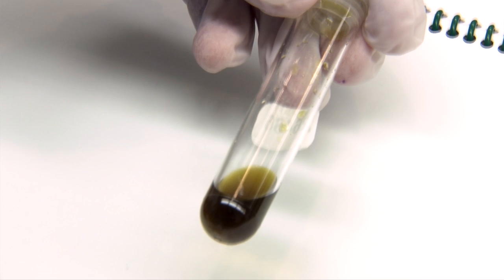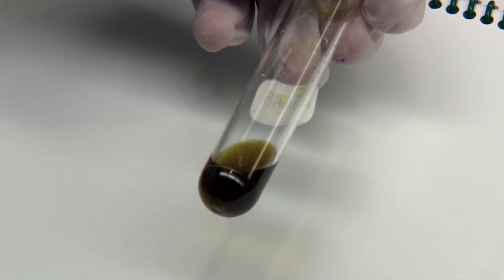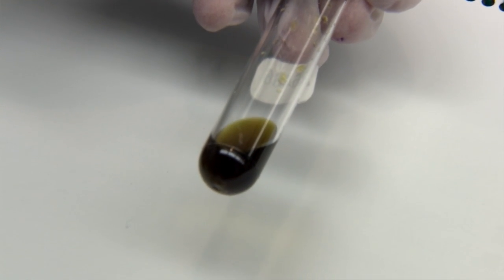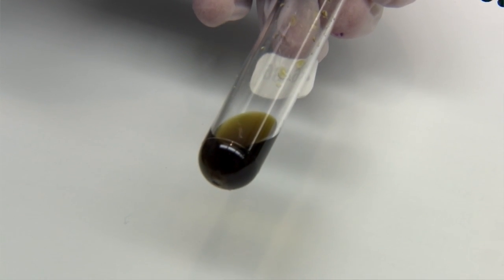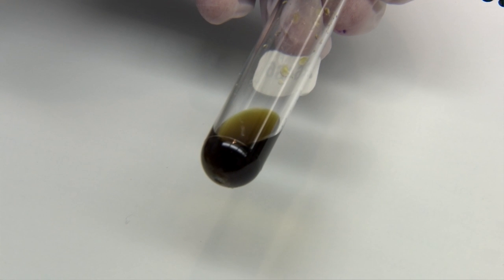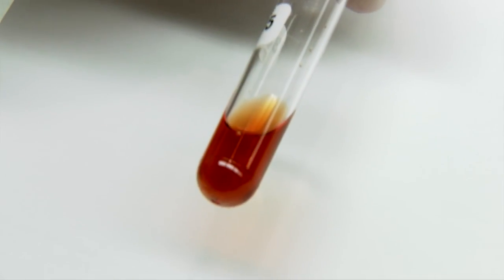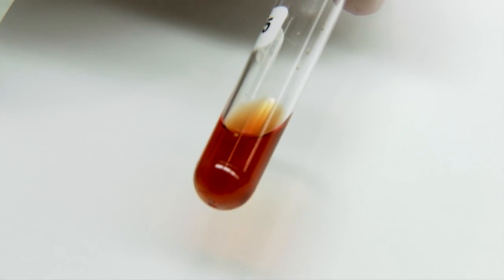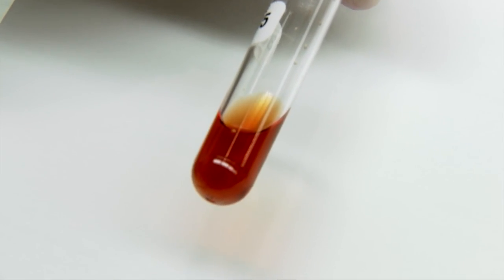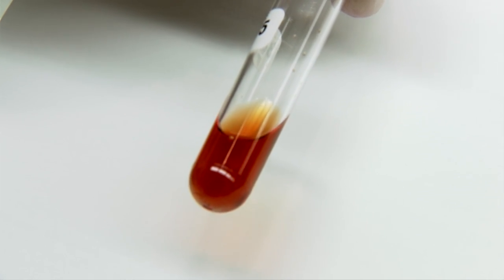You can also have a kind of greenish colour — there are various colours you can see, and you just call whatever you see. This one here looks like it has some hemoglobin in it as well; it's kind of a red colour.